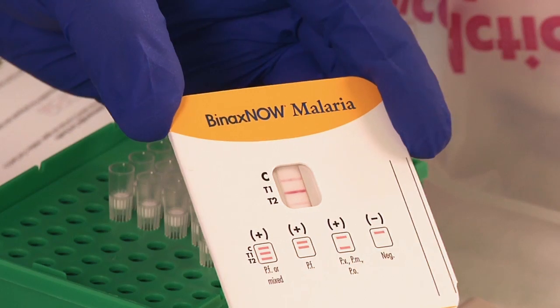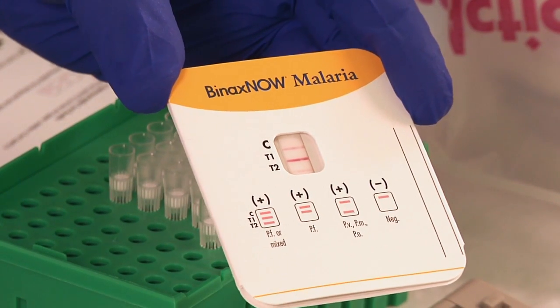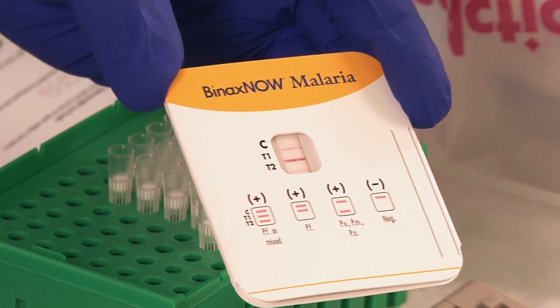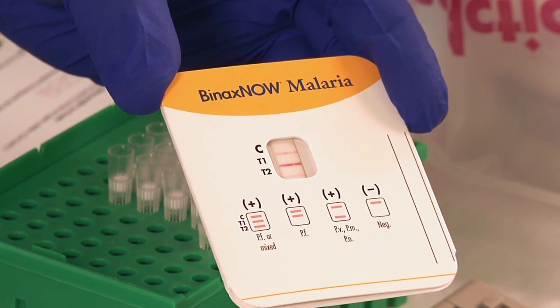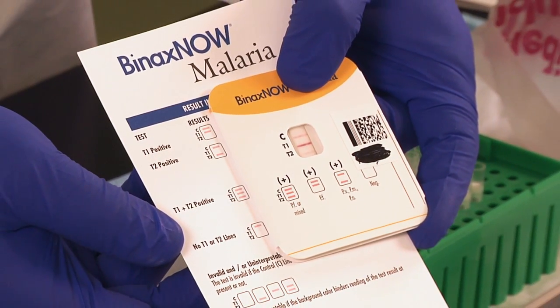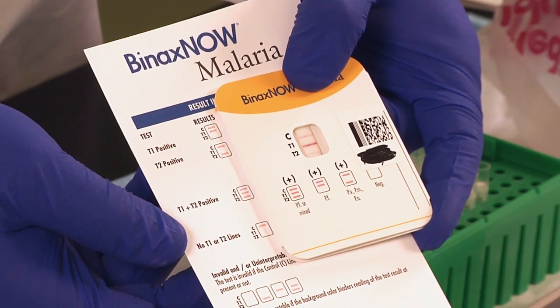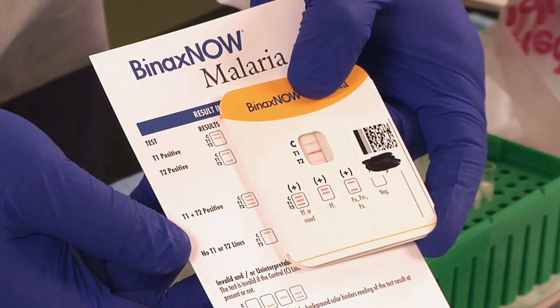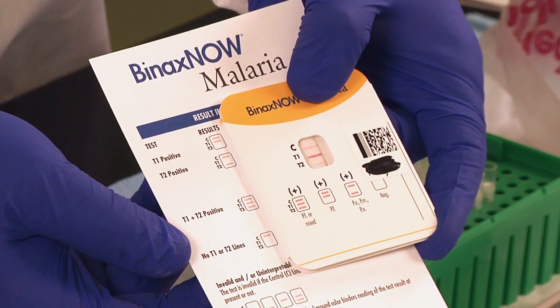When reading results, tilt the device to reduce glare if necessary. The control line, C, will appear on all valid tests. The appearance of any additional test line in the T1 or T2 row, or both, indicates a positive test, even if very faint.